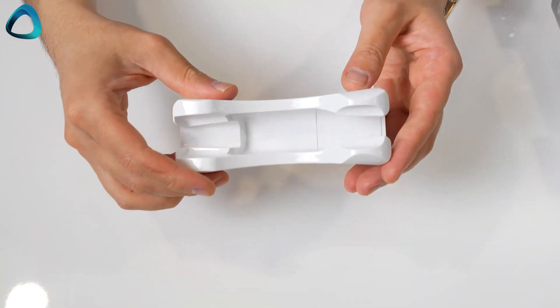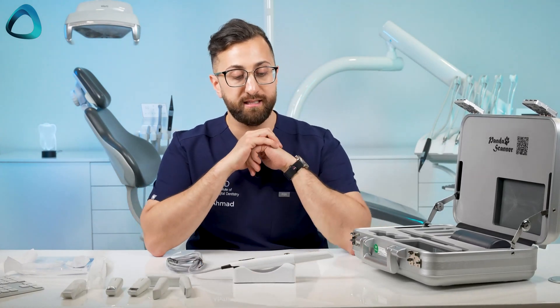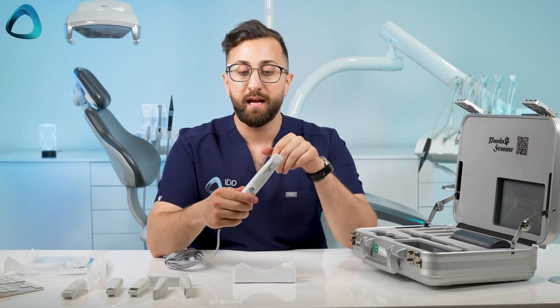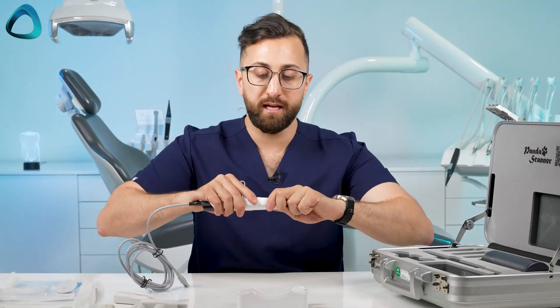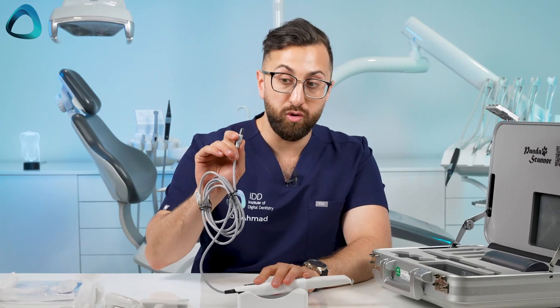There's also a standard desk cradle here, and this will simply house the scanner and sit on your desk. If we just pick up the scanner and get one of these tips on — as you can see, click on, click off, nice and easy — and this will be plugged into your computer.